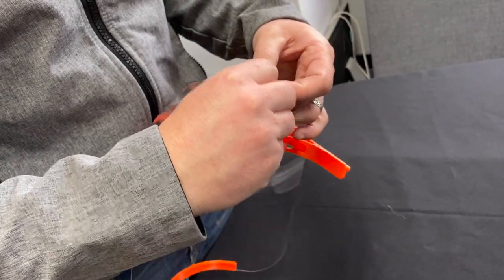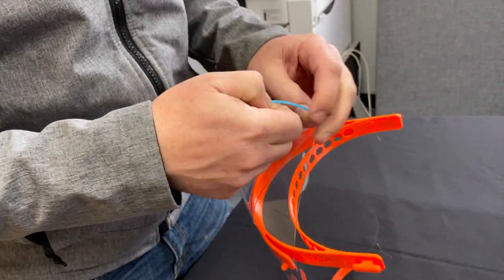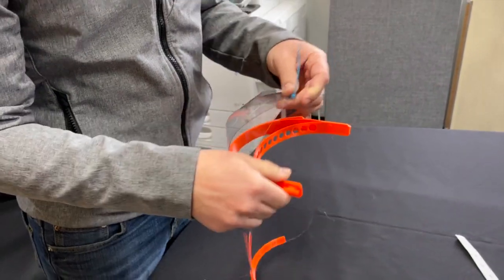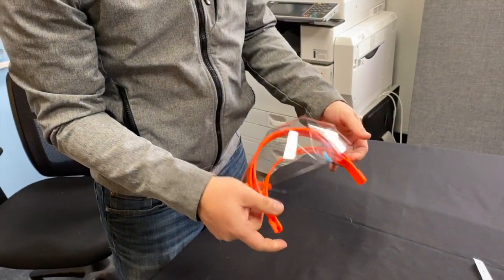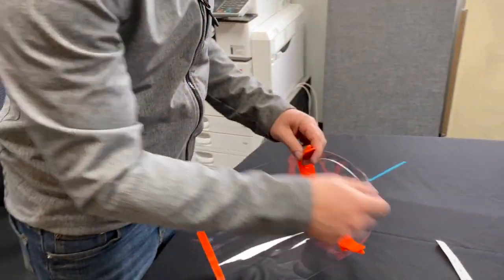Close up your zip tie and that completes the assembly of the front face mask.